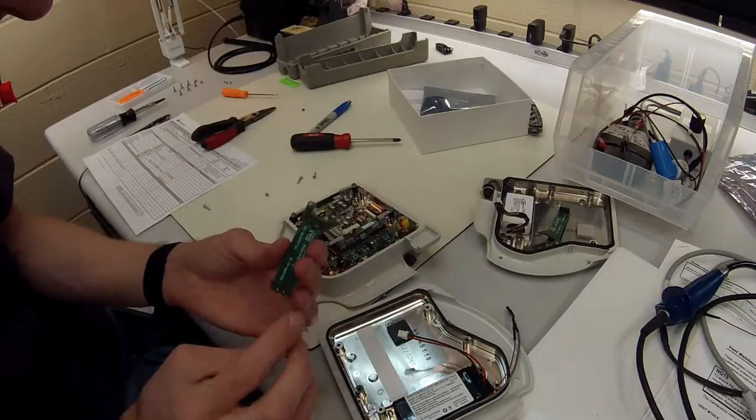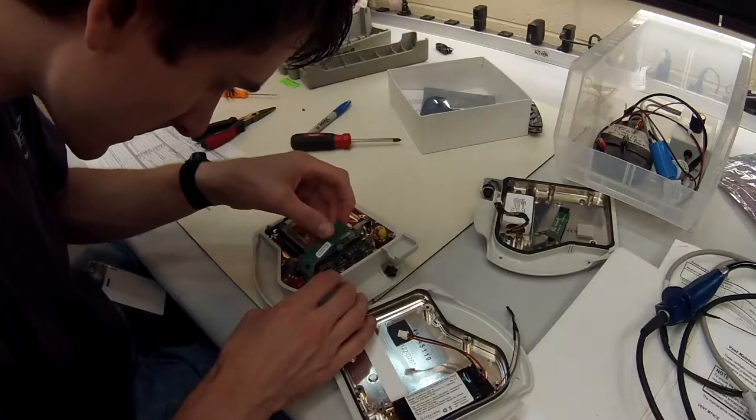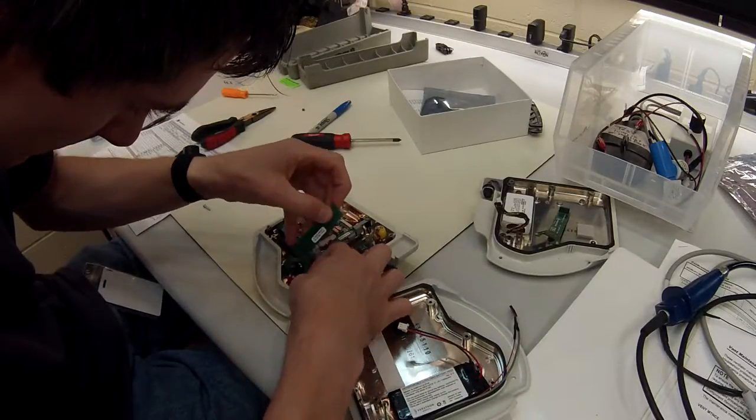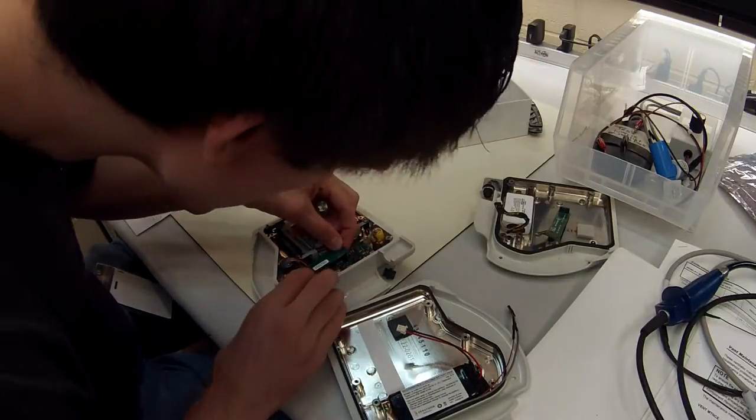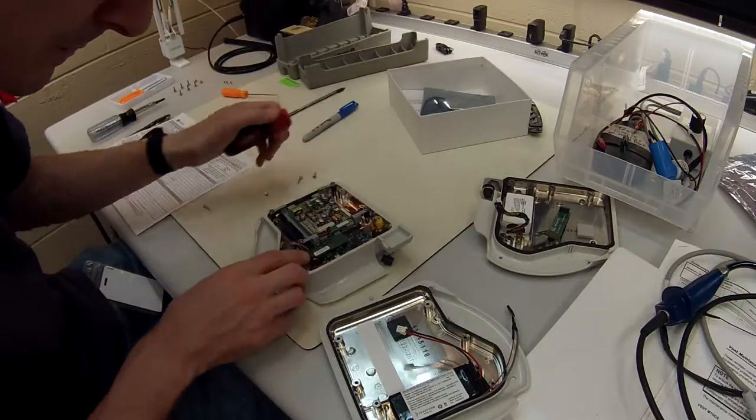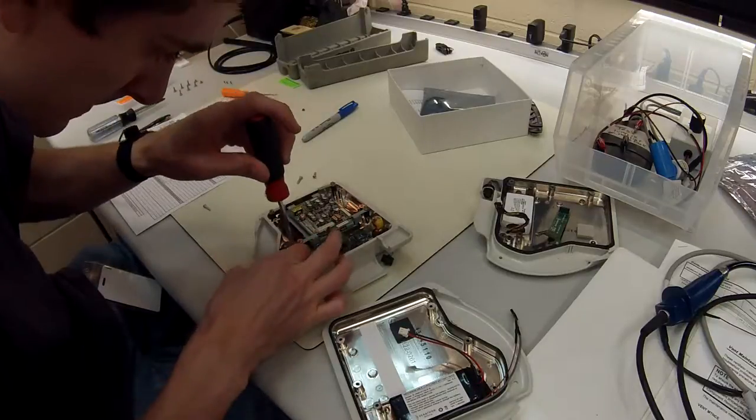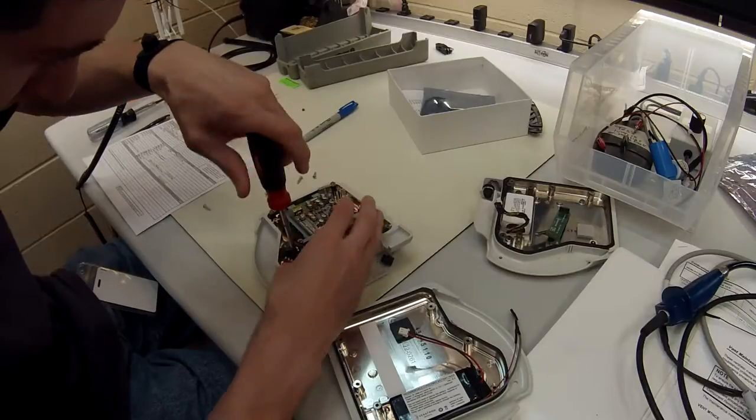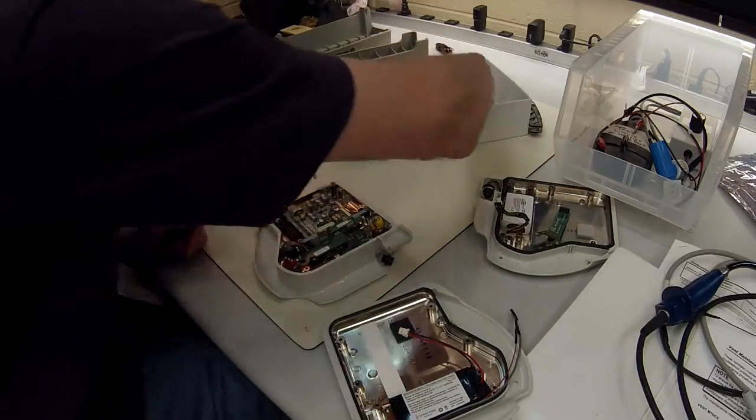Pull it out. Looks exactly the same, go figure. And we're going to just slide it in, just like that, and plug her in. I don't know anything about if there's any torque values that we have to adhere to, but I'm just going to lightly tighten it down. There's no instructions at all with this, so I'm not 100% sure.